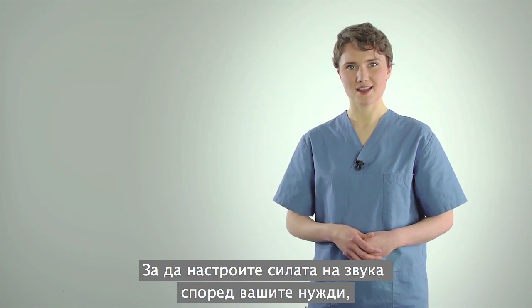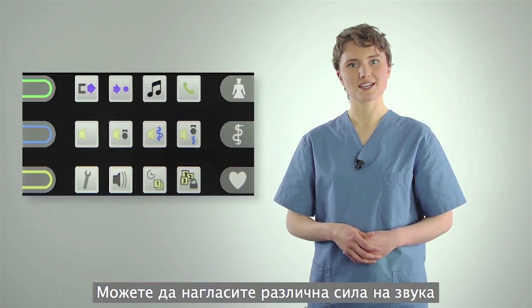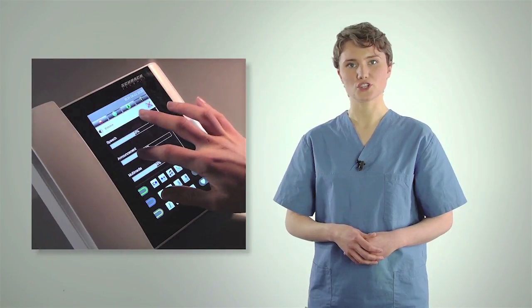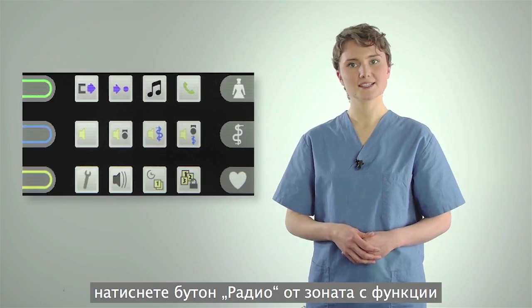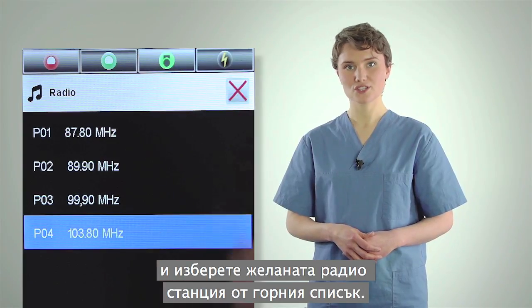To adjust the volume to your needs, press the Volume function button. You can set different volumes for various functions by swiping. To listen to a radio program, press the Radio button in the Functions area and select the desired station from the list above.